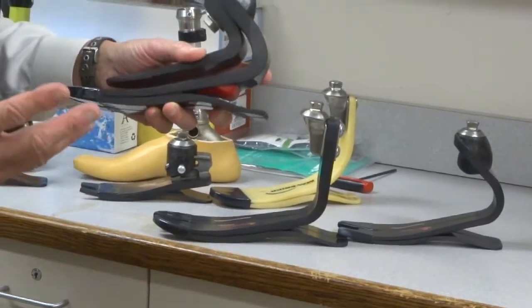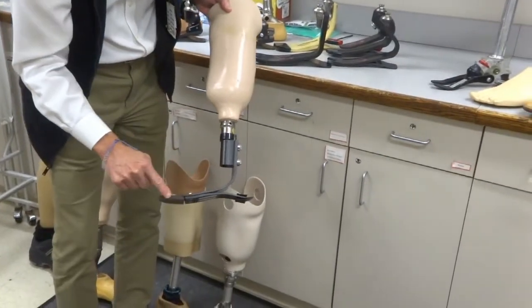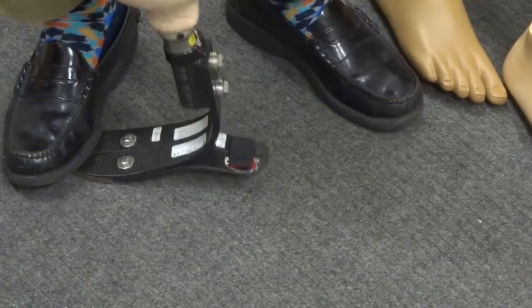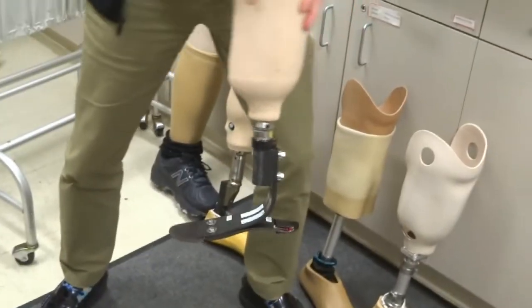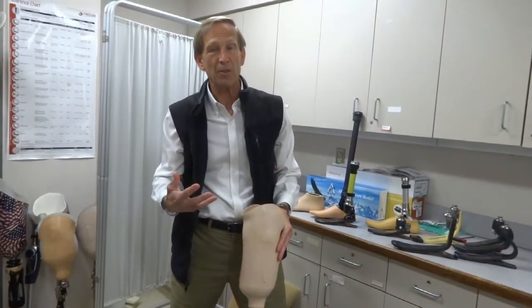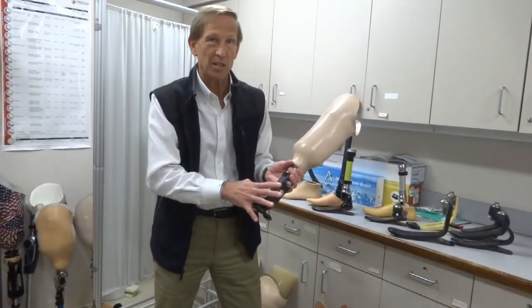What do I mean by dynamic response? This prosthetic foot has a carbon fiber strut that comes down across here. The heel is much thinner, so when the foot hits the ground it bends, and more importantly, as it comes forward it gives you a little bit of bounce — it springs you forward. That's what dynamic response is. These feet are still very lightweight but becoming very expensive, costing in excess of one thousand, two thousand, even up to ten thousand dollars for just the prosthetic foot.